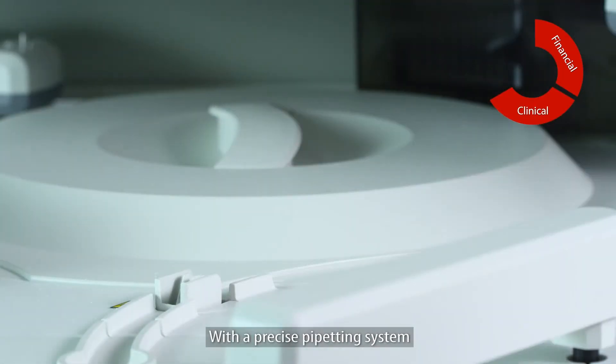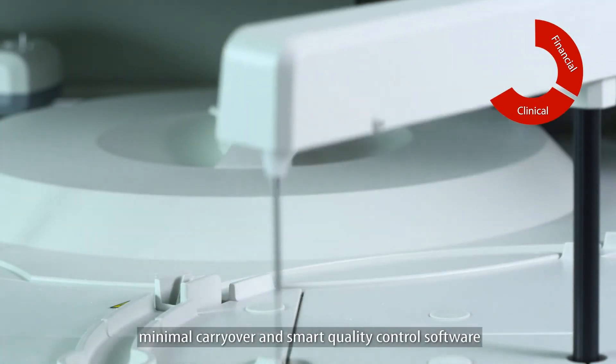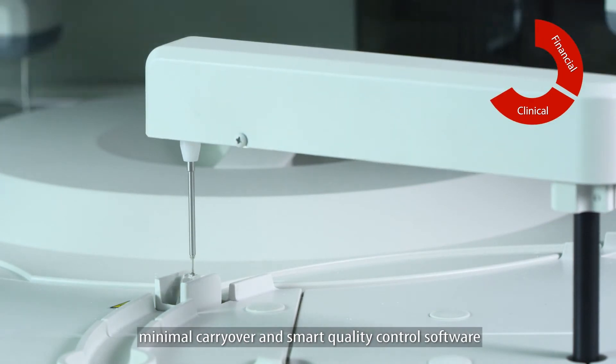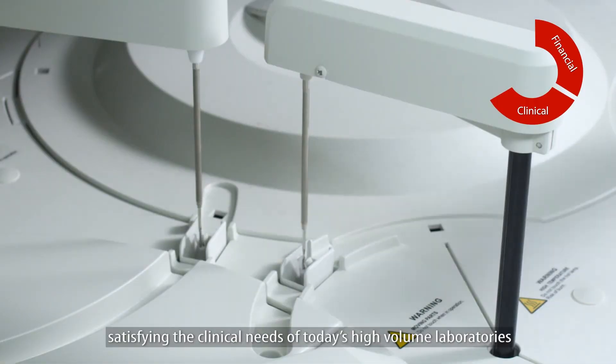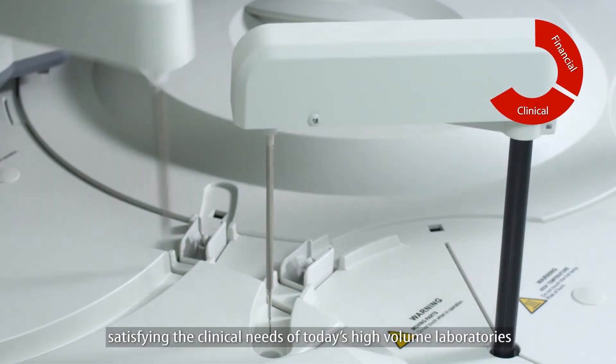With a precise pipetting system, minimal carryover and smart quality control software, the BA800M achieves accurate test results, satisfying the clinical needs of today's high-volume laboratories.